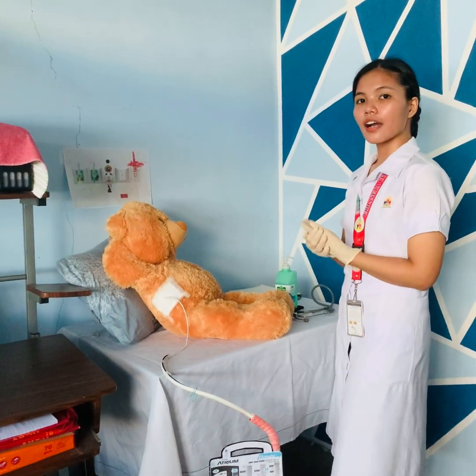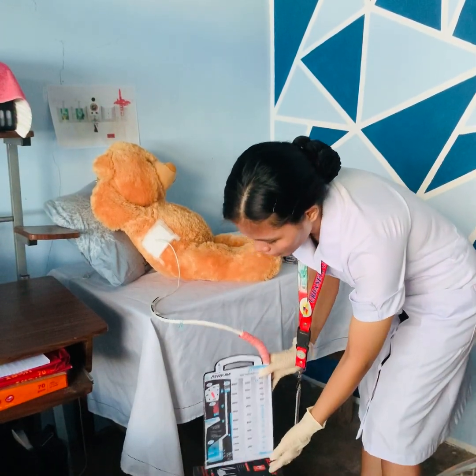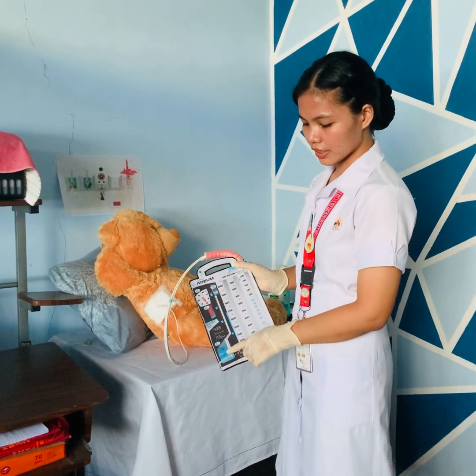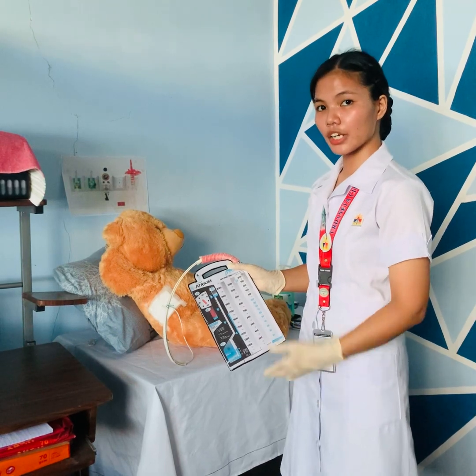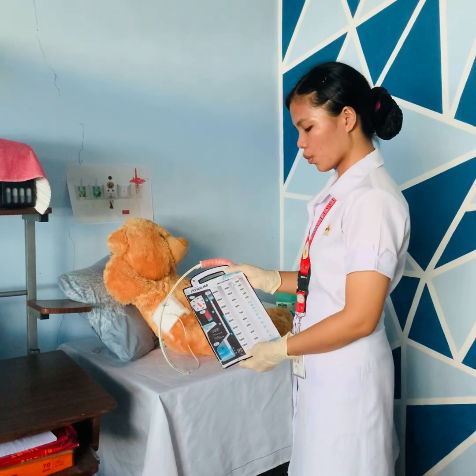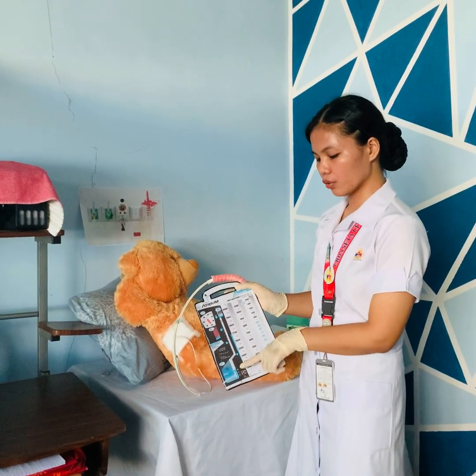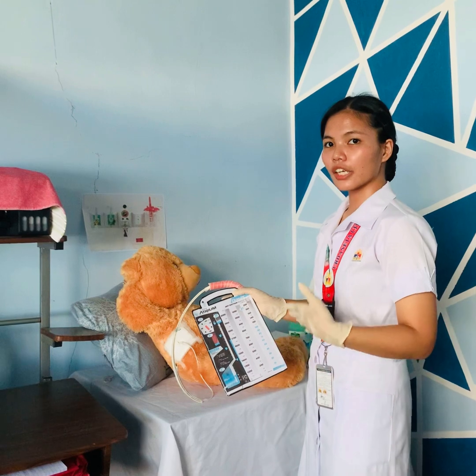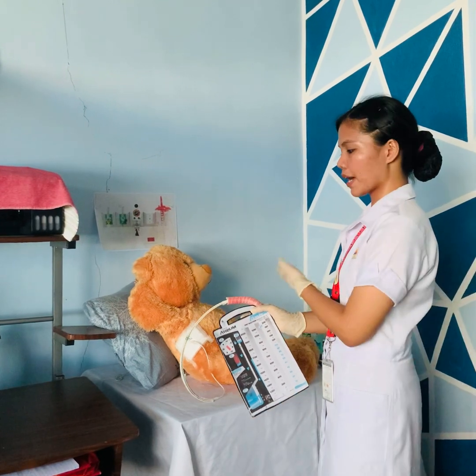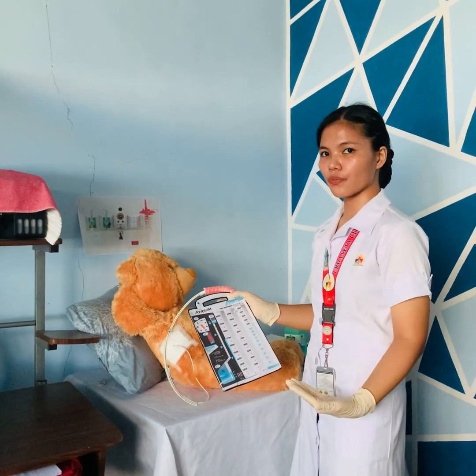Periodically check the water seal chamber each shift to ensure the water level is at the dotted line — at 2 cm — as water may evaporate, and add water as necessary. Also check for tidaling; the water should move up and down with respirations. Note that gentle or periodic bubbling is normal as the lungs expand, so always assess the system to ensure proper functioning.